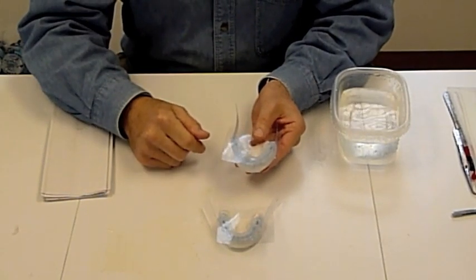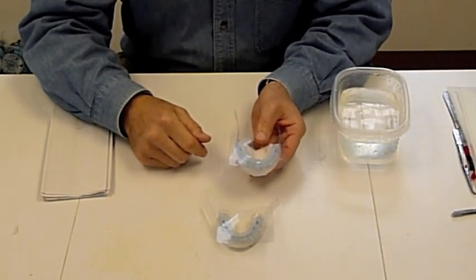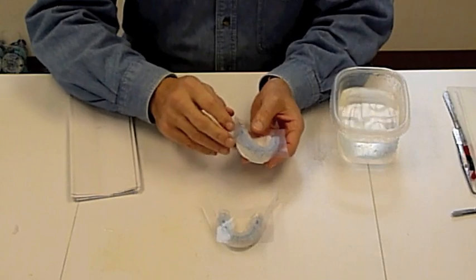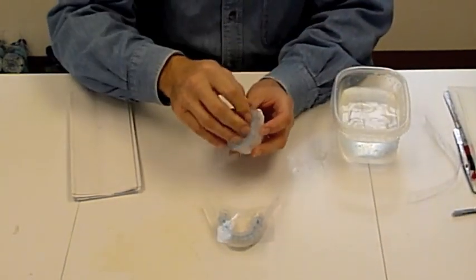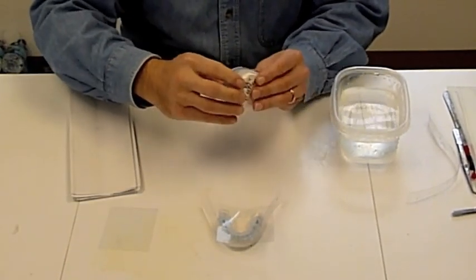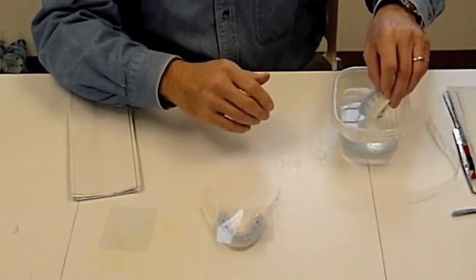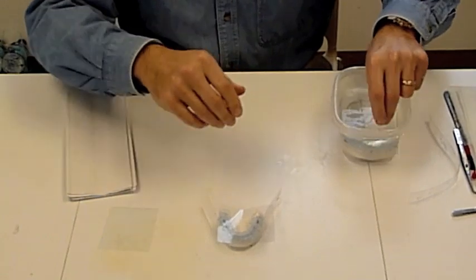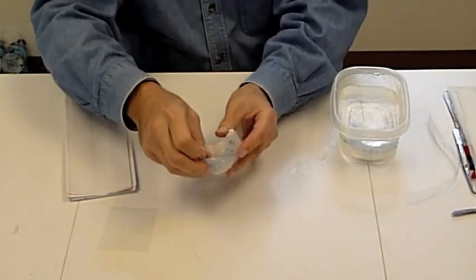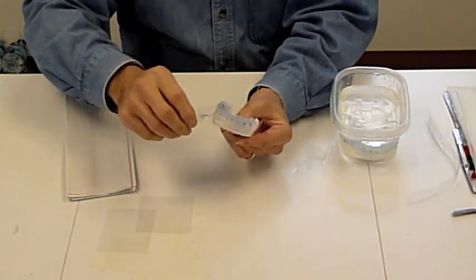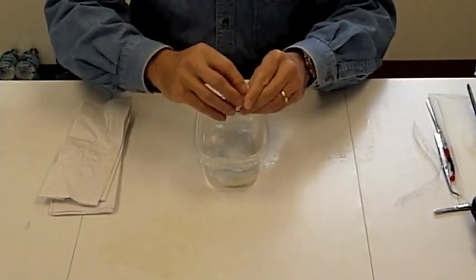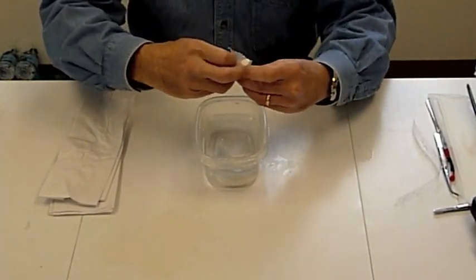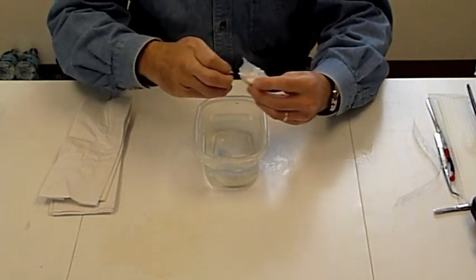Once the silicone trays have hardened, the plastic material containing them can be removed, and then the trays soaked in warm water in order to remove the trays from the models. We've had our tray soaking here, now it's time to go ahead and we can remove some of the material around the sides.